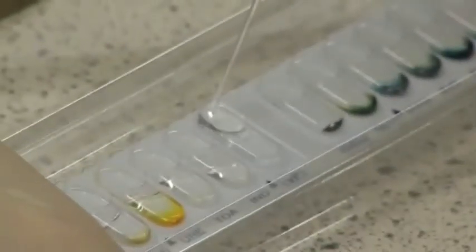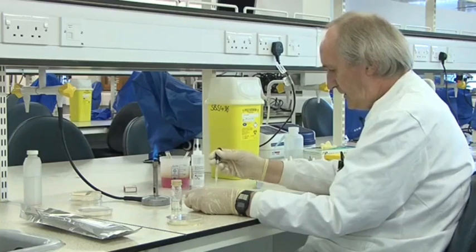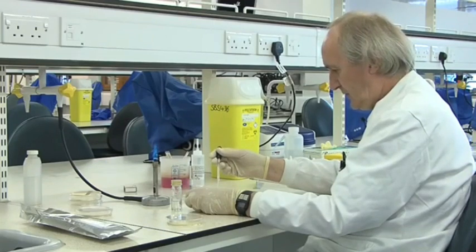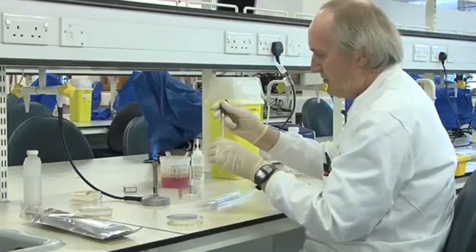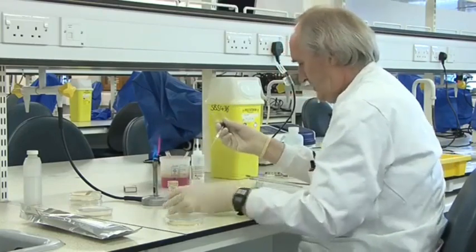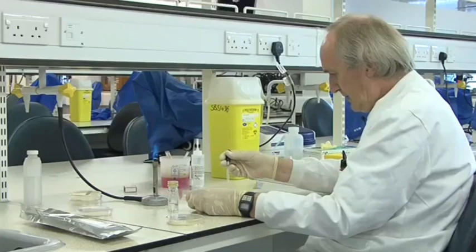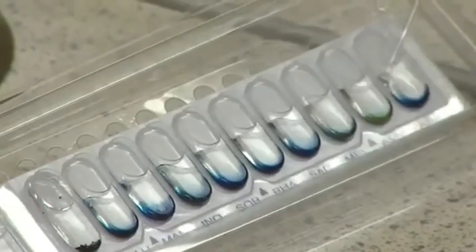That one again has a box under it, so we fill it right up to the top. Then digestion of gelatin — most bacteria can't digest gelatin, neither can we, but some can. That's another one you fill right up to the top. Now the rest of the strip to the right is carbohydrates or related compounds. A very important one, the first one, is glucose, because if the bugs don't break down glucose they're not Enterobacteriaceae — you're probably using the wrong bacteria with the wrong strip. Then some other carbohydrates: mannitol, inositol, sorbitol, rhamnose, saccharose, melibiose, amygdalin, and lastly arabinose.